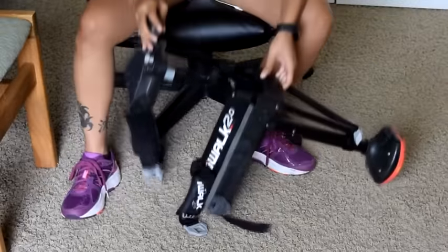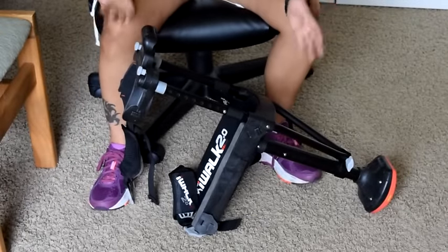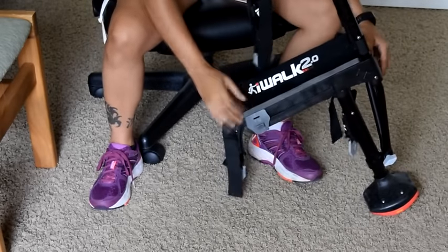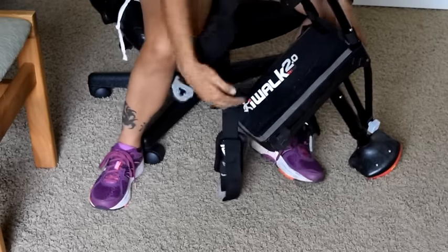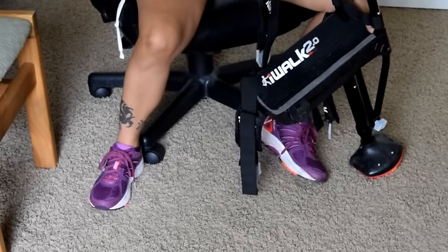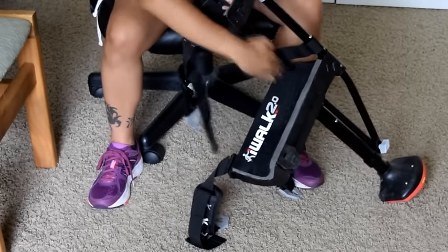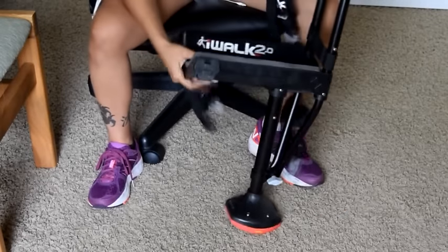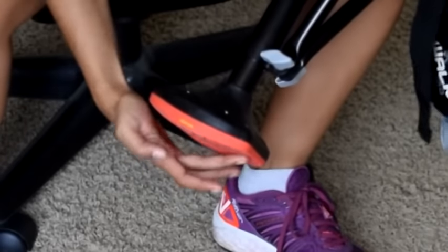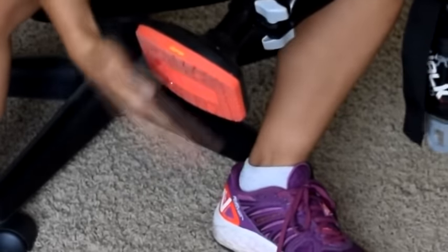For the time being I was actually using this thing right here — it's a knee crutch and it makes it hands free. What's neat about it is it's pretty easy. This is real soft. You're going to have your knee go into this portion right here. Your leg, your thigh — this strap goes around the crotch area. So if you're a dude it might be a little bit uncomfortable, but for the most part you're still going to be okay. The bottom has a vibrant grip material, making it have a really good solid grip.